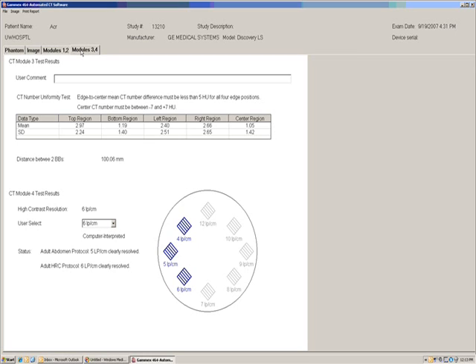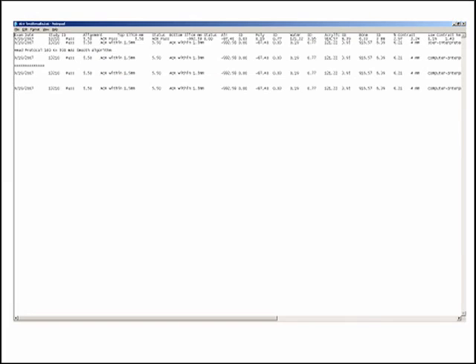The results can also be exported to an external comma-separated file by selecting Export Data on the pull-down menu under Print Report. The data is reported in columns and new data is appended. This allows for easy graphical trending analysis after the file has been imported into an Excel spreadsheet.